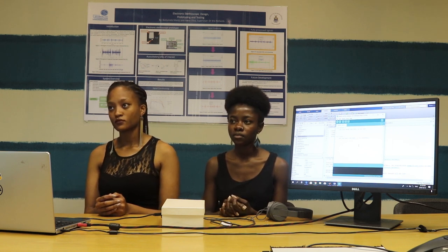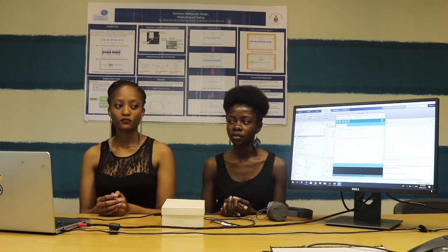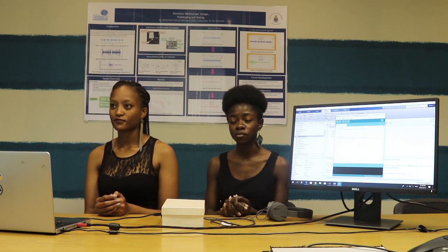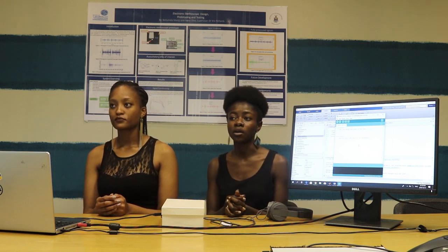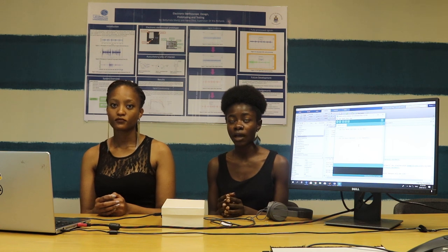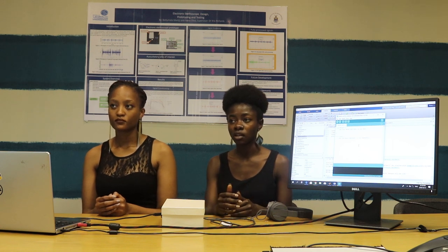MATLAB has built-in functions which helped me implement the Wavelet Transform faster as opposed to hard coding it. The biggest technical pain was the process of denoising the signal, but it really did help me to actually complete it in the time we were given for the project.